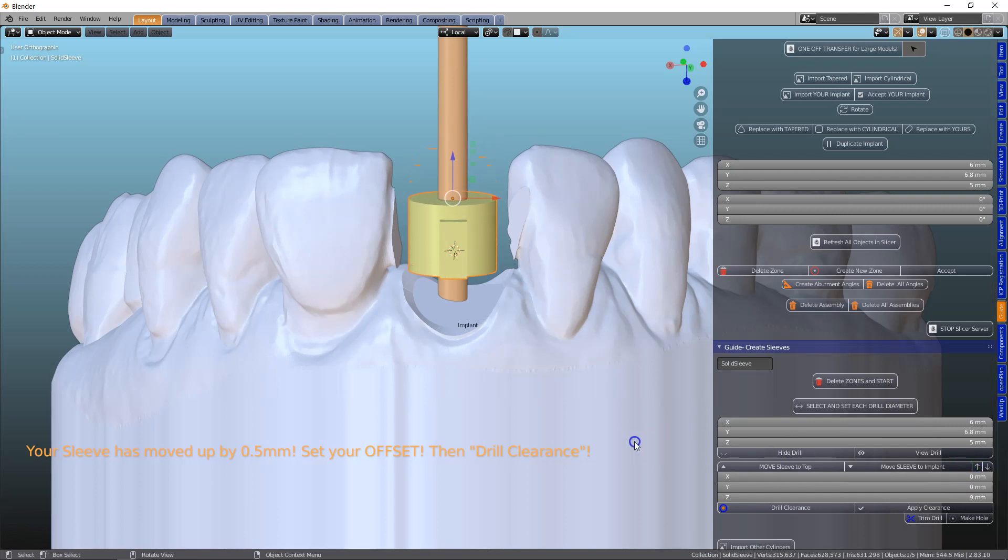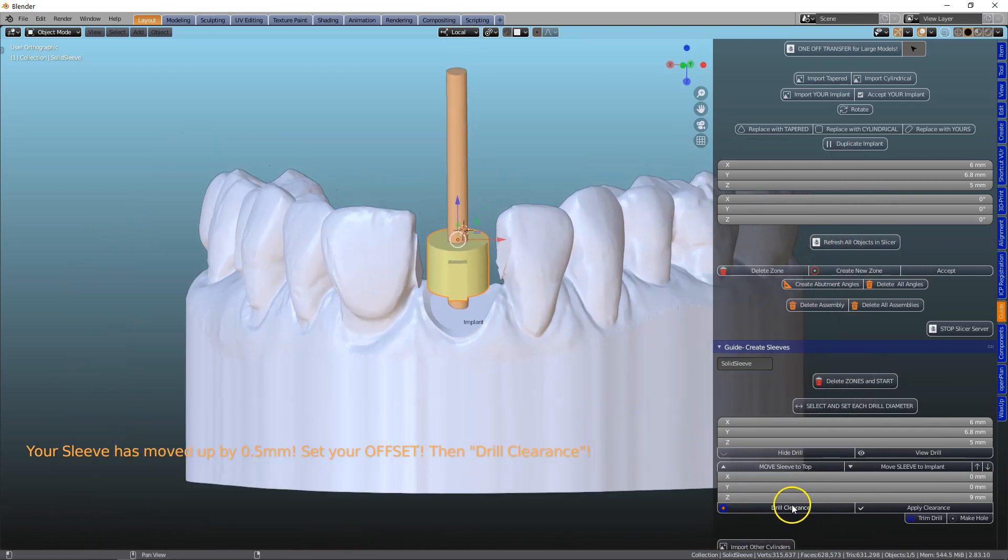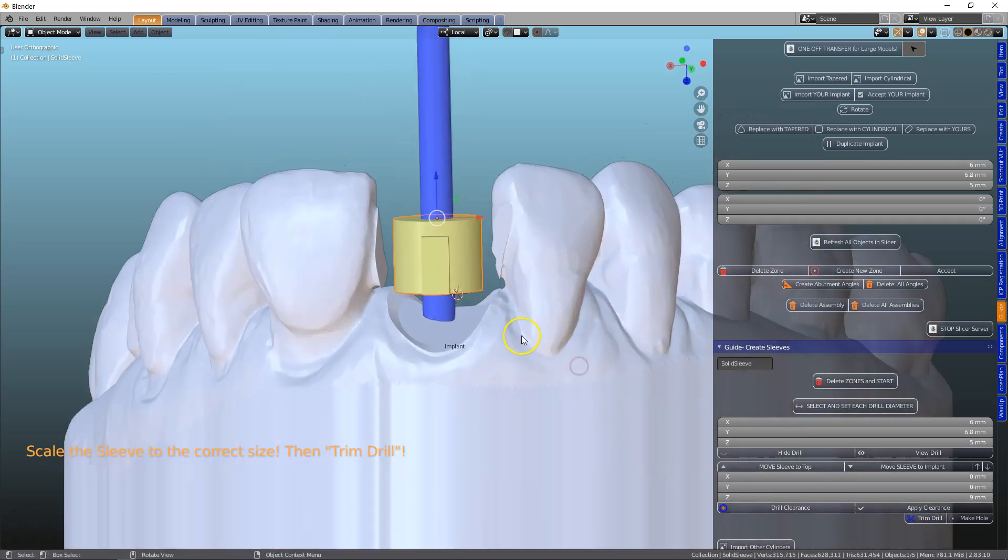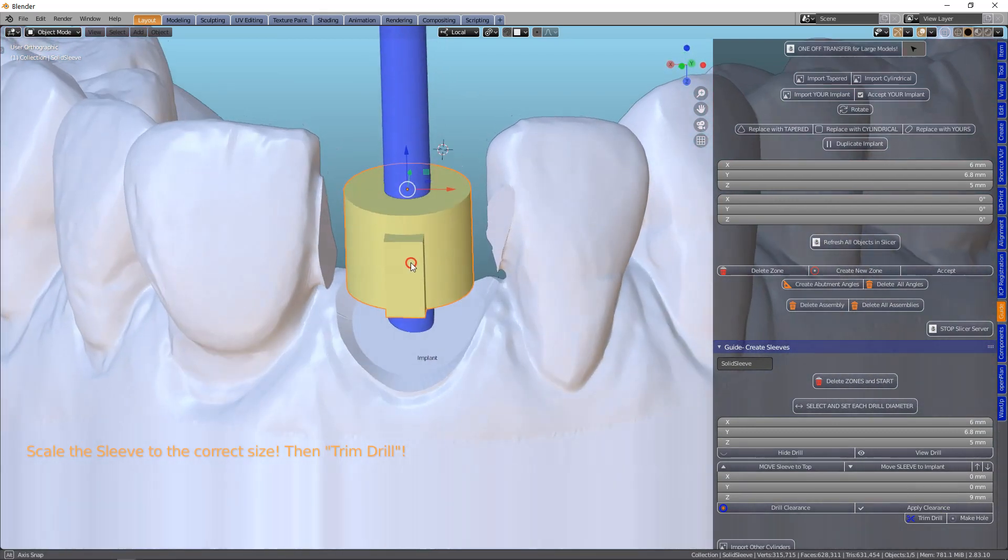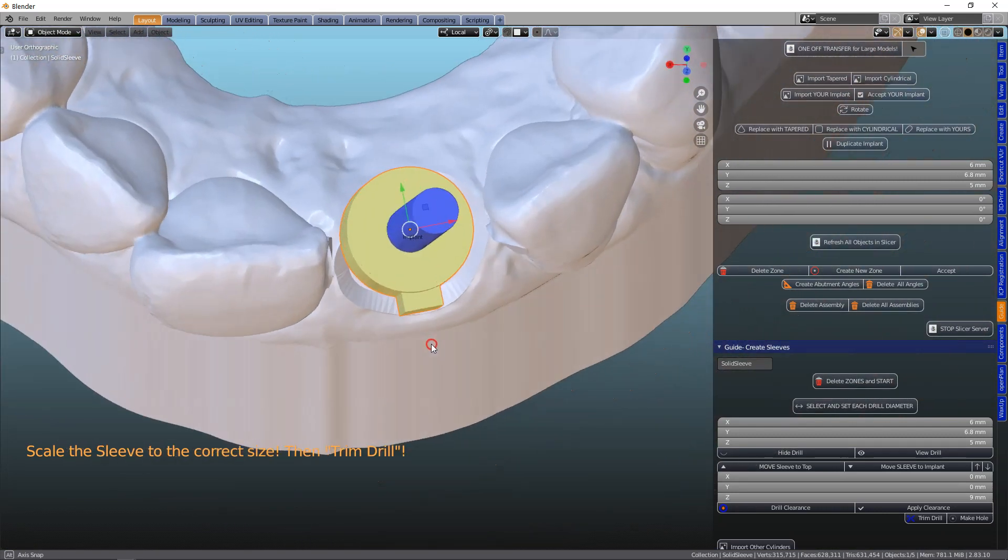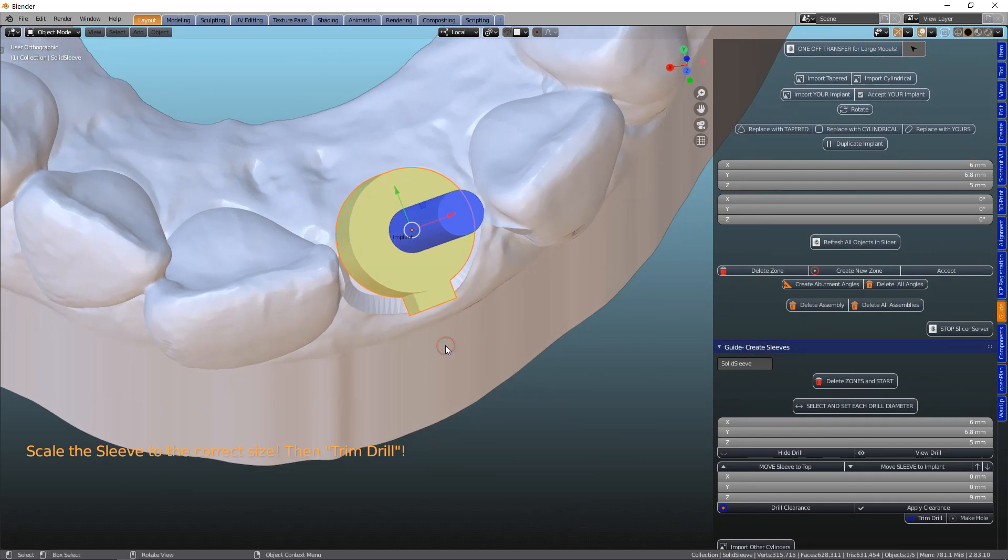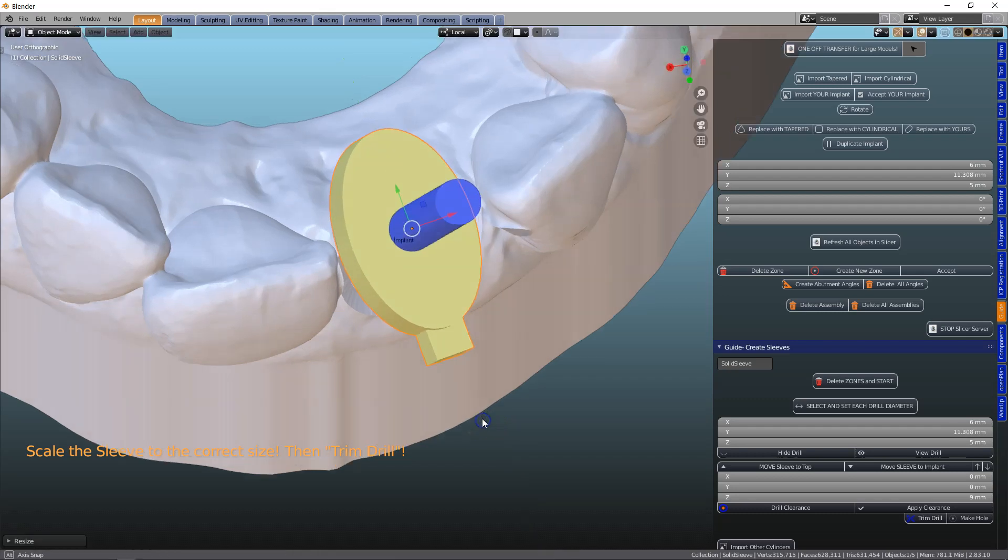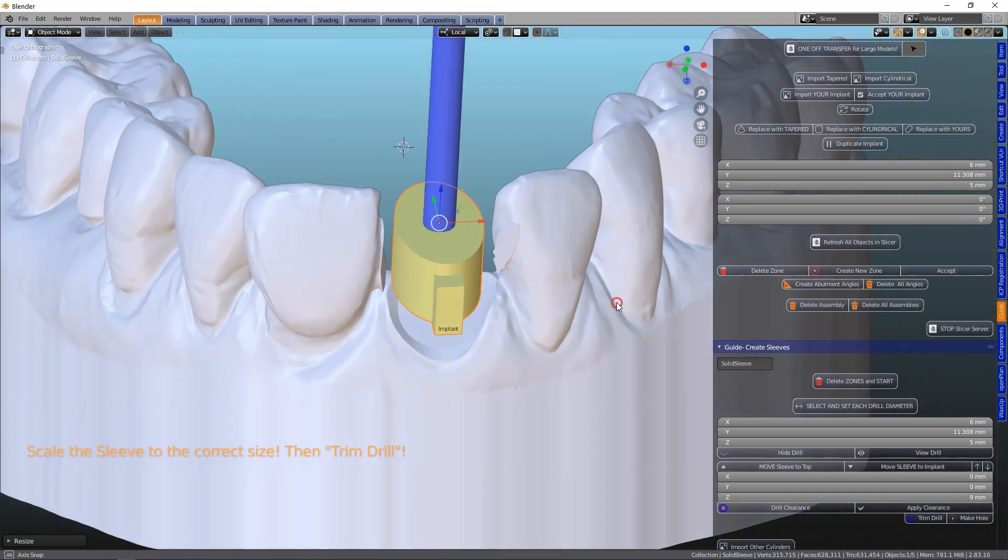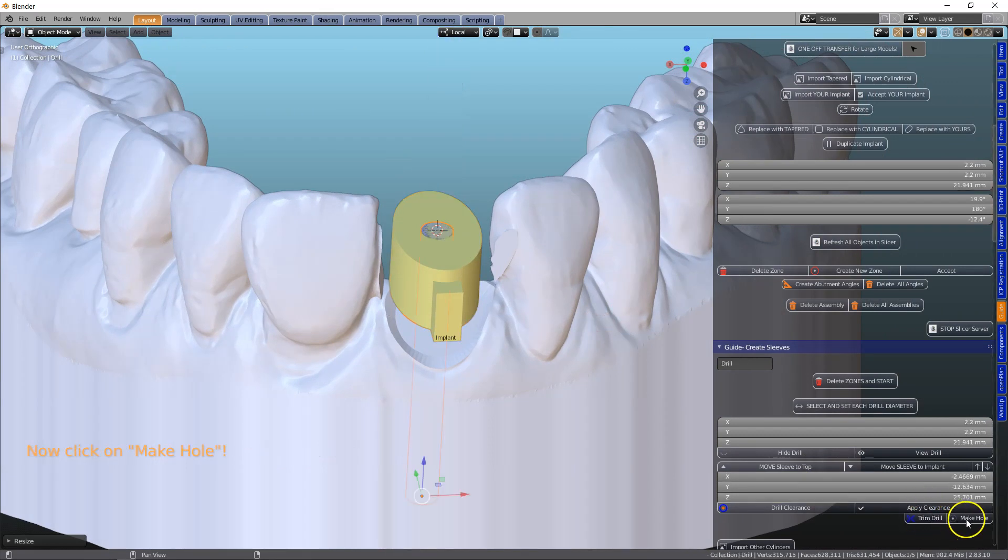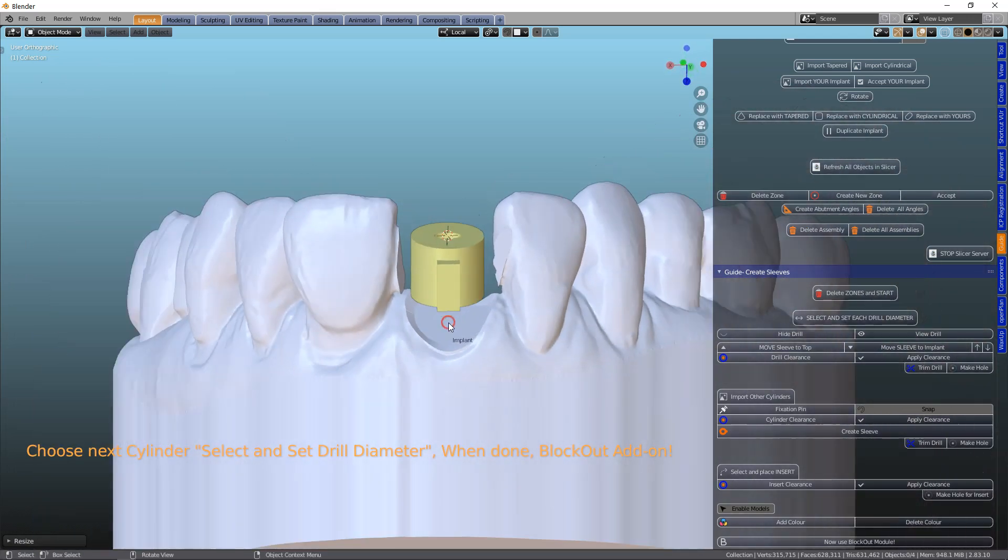Let's set that down to 9mm and then we're going to make our clearance for this. Apply that. And then we can make this longer or shorter if we want to. We're going to leave it exactly the way it is. We can actually now if we want to scale it by the y-axis even. That can help us with our guide, because then we can attach it straight on over there. I'm going to trim a hole into that.